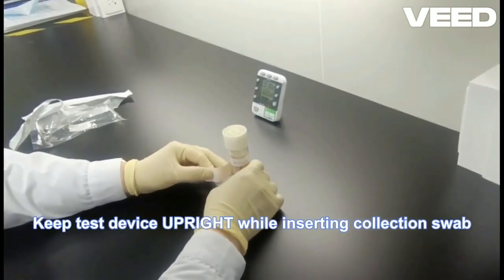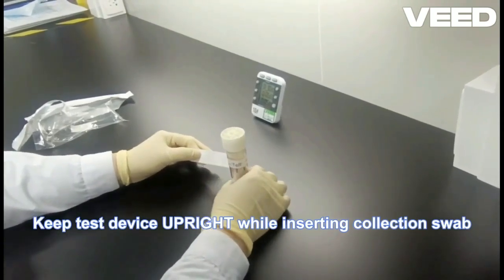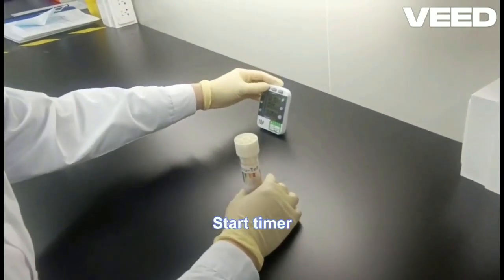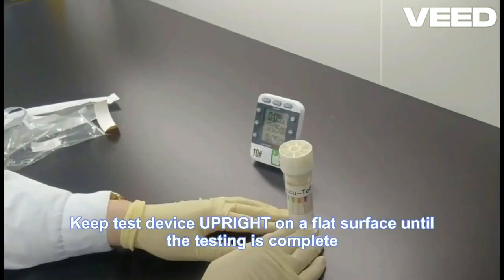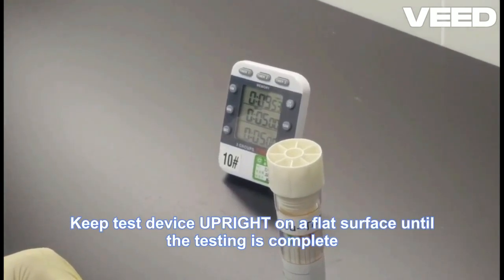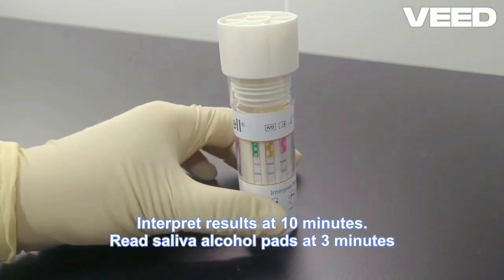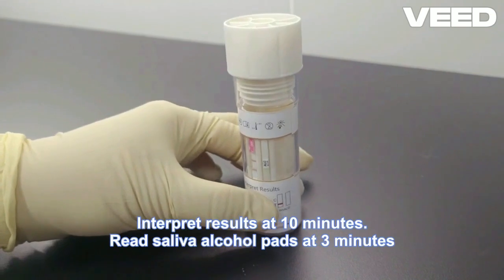Almost immediately, flow will be observed. By this we mean the upward travel of oral fluid along the individual test strips. After 10 minutes the test can be read. For a negative test, 2 lines will be present for each individual drug. The C line is the control line, and the line must always be formed at the end of the 10-minute period. It is an indication that the test for that particular strip has worked as designed.